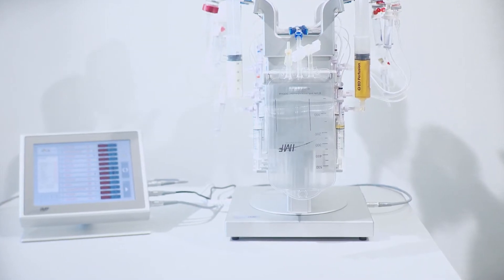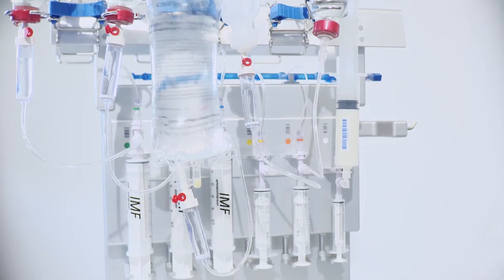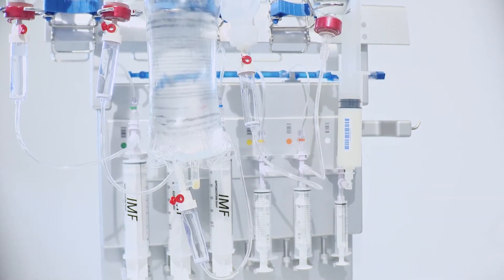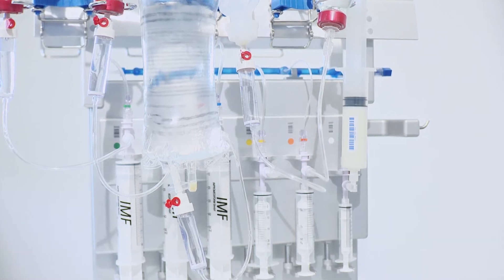The ImproMediForm GmbH Medimix Multi is a multi-ingredient solution compounder that accurately delivers both micro and macro ingredient volumes as low as 0.5 milliliters without disconnections.